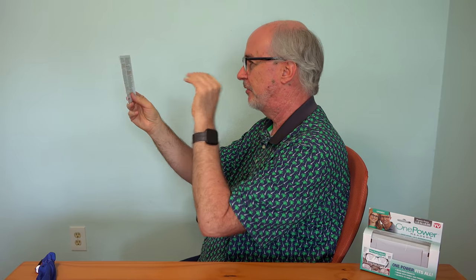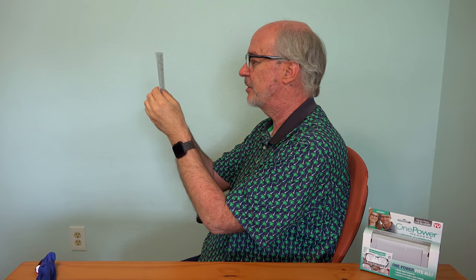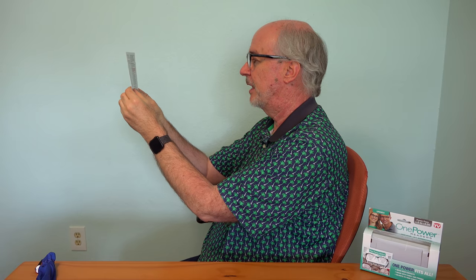So I'll test them out and compare them to the glasses that were made specifically for my eyes. These are about a plus 2.0, and I have a slight astigmatism, so the lenses aren't exactly the same. I'm looking through the very center of the lenses now and it's in focus here. It's starting to get blurry around eight to ten inches. Pulling it away — still in focus, still in focus — then starting to get blurry. So that's the range for looking through the center.